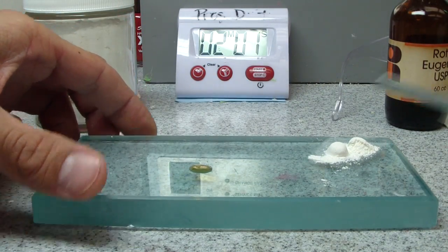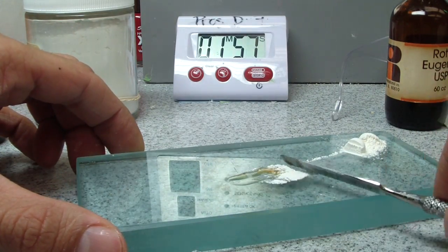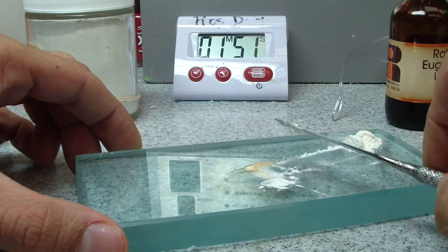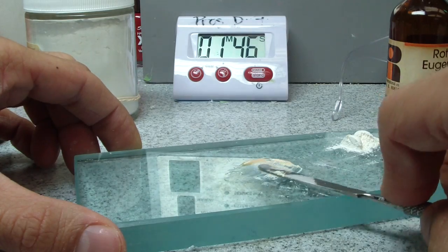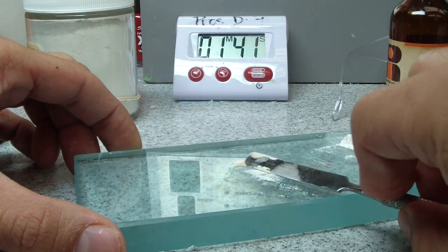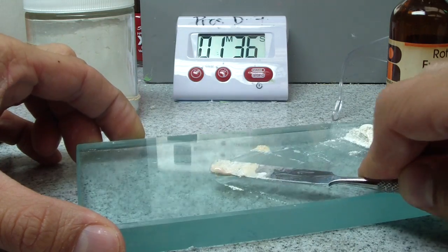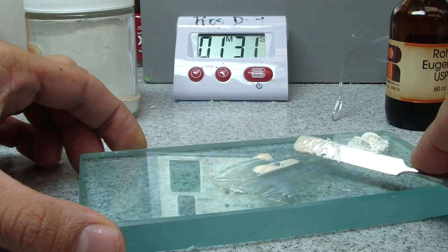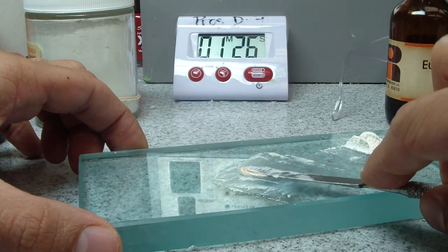And one of the things I learned, actually I'll talk about it when I go. Okay, so nothing like mixing things on glass. I think that's what we use. Some of the things I learned from a dental assistant is to pick up the—they didn't really teach you this in dental school, maybe they do—they didn't teach you in mine. Pick it up with the end of the spatula, so you see how I'm using half of sort of the end tip to pick it up, so it sort of stays all mixed together.